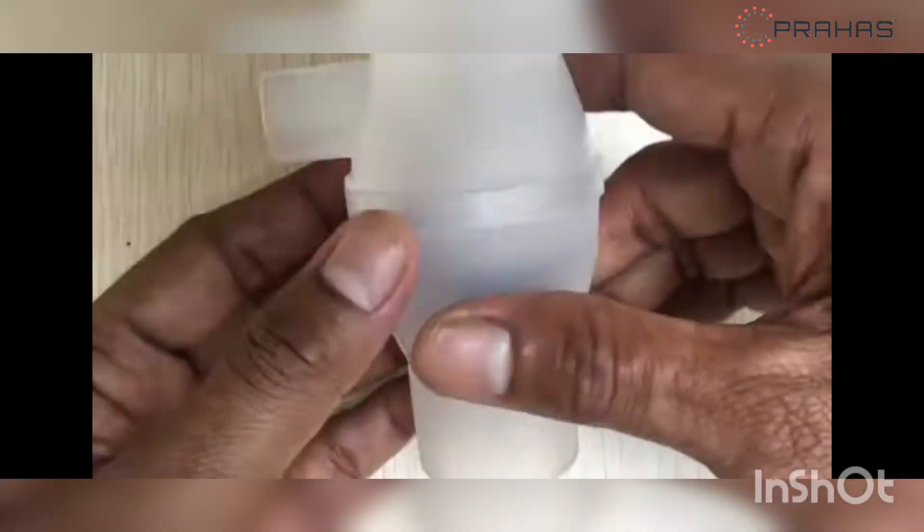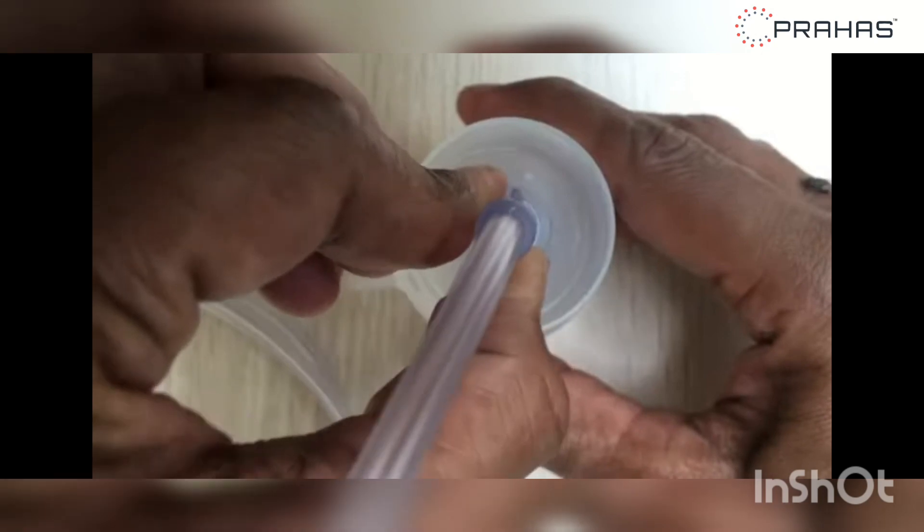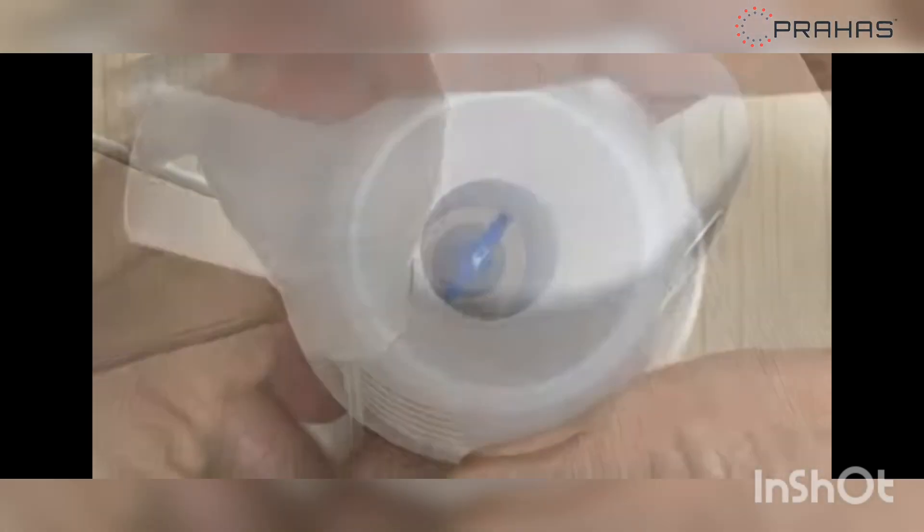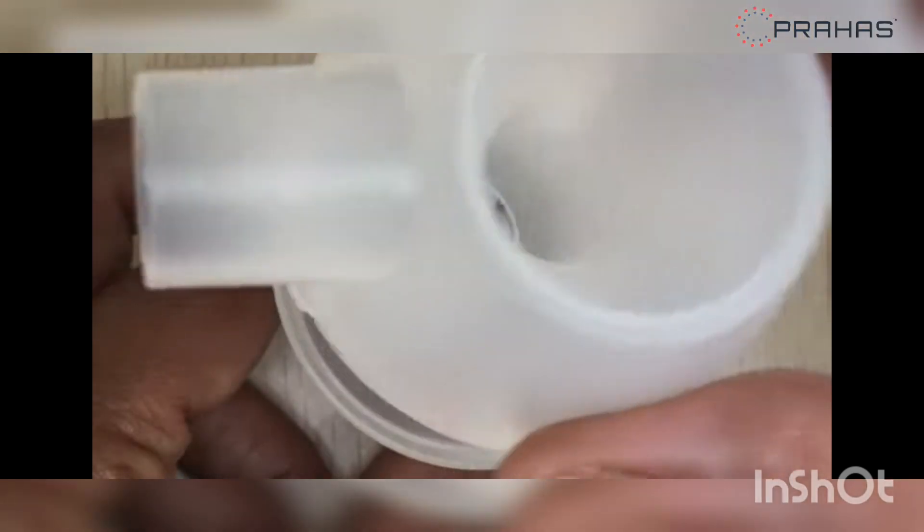To begin pick the medication tank. Connect the air tube to the medication tank at the bottom and place it on the holder. Remove the inhalation top by gently rotating anti-clockwise and lifting.